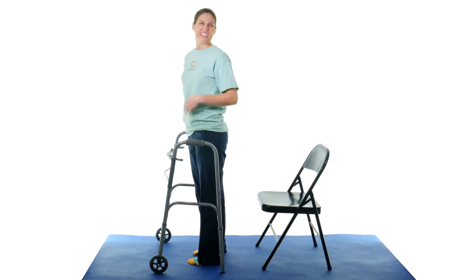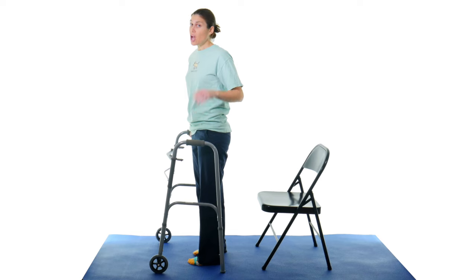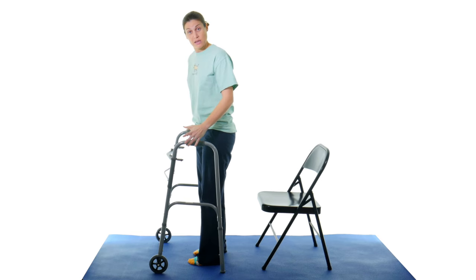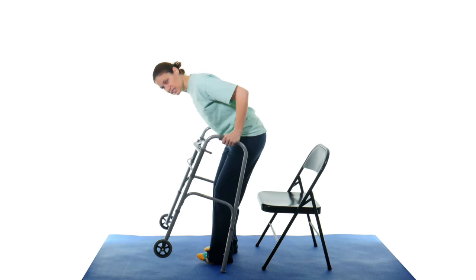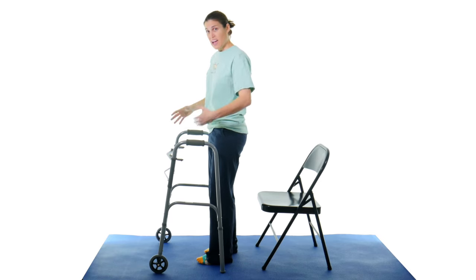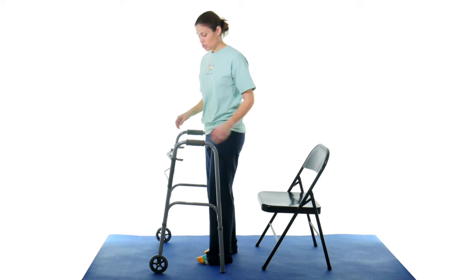So really it's the same concept going back down. A lot of times this is where people want to hold on to their walker because they want to stay safe, but then they're trying to sit down like this, and that ends up, again, they're either just going to plop down or they have all this in the way and you're going to miss the chair.